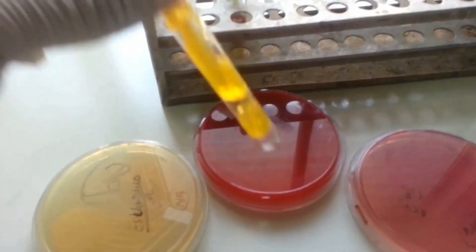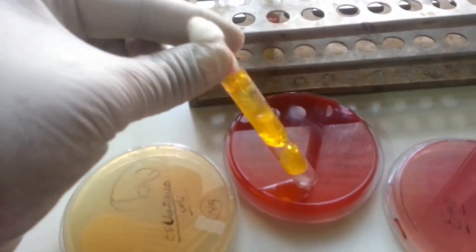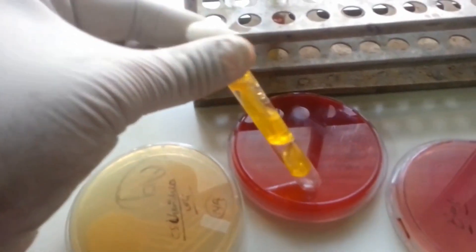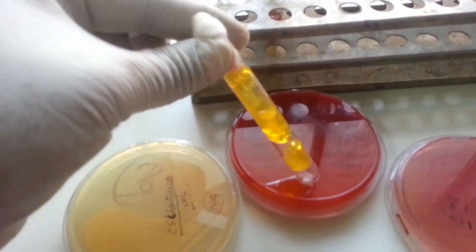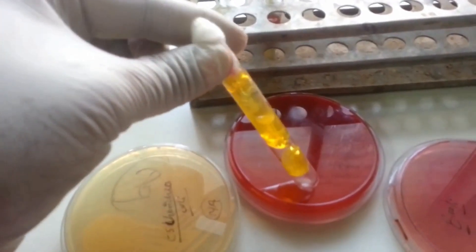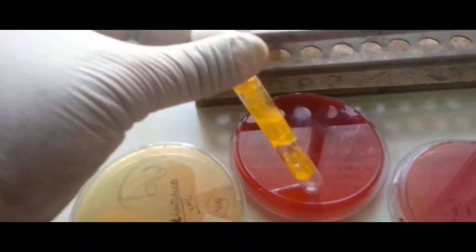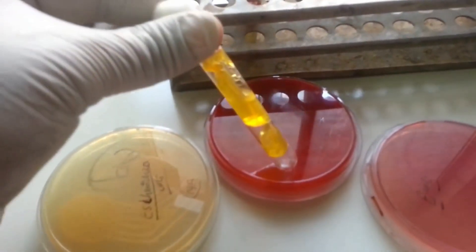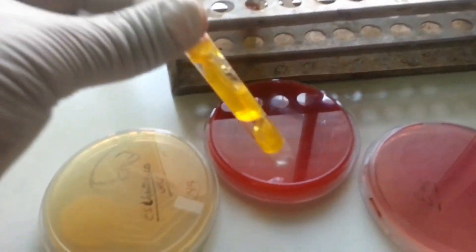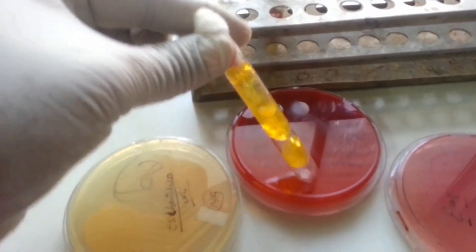Triple Sugar Iron — in brief, TSI agar result: slant and butt yellow by yellow, that is acid by acid. Displacement of medium showing gas production. No blackening of the medium, thus no hydrogen sulfide production.